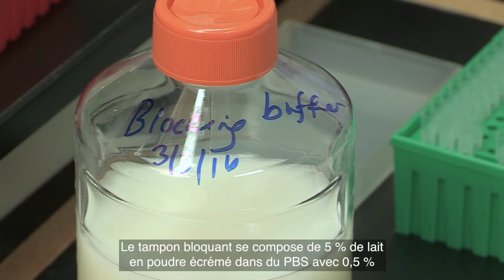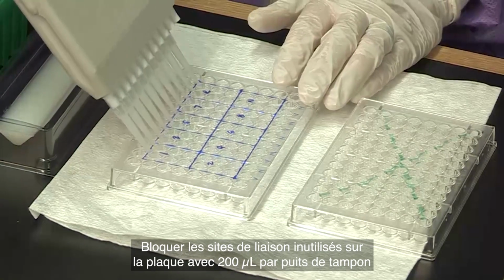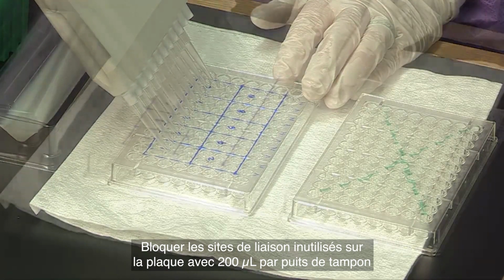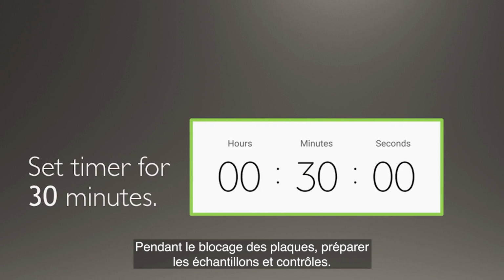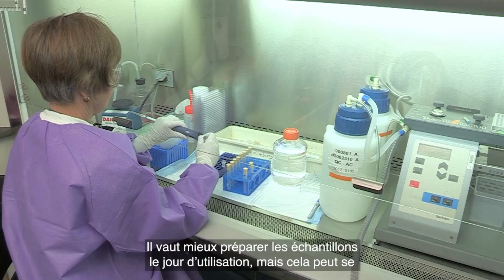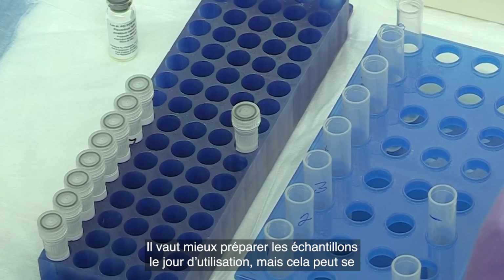The blocking buffer is made of 5% non-fat dry milk in PBS with 0.5% Tween 20 and can be stored at 4 degrees for up to 3 weeks. Block the unused binding sites on the plate with 200 microliters per well of blocking buffer. Cover the plate and leave to incubate at room temperature for 30 minutes. While the plates are blocking, prepare the test samples and controls. Test samples are best prepared the day of use, but can be prepared up to 1 day ahead of time and refrigerated.